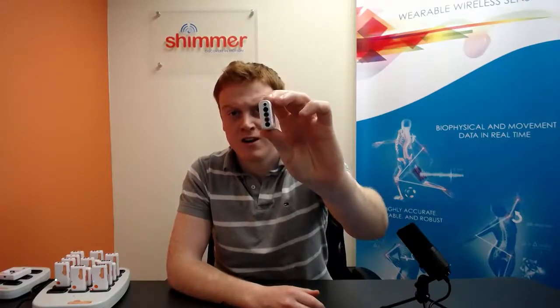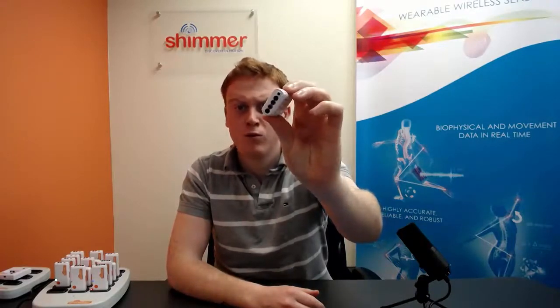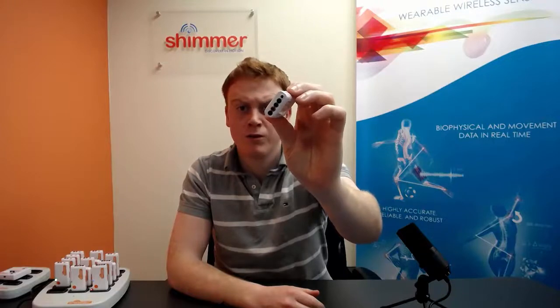The EMG sensor can be used to measure two channels of EMG simultaneously. As you can see, the unit has five ports. Two ports for each channel and one port, the middle port, for the reference electrode. With our system, the unit is typically placed on the body location of choice, with biophysical leads connecting the unit to the EMG gel electrodes that are placed at the measurement site. Also worth mentioning is that the EMG sensor has the full 9DOF inertial sensing capability of our standard Shimmer3 IMU motion sensor. All these signals can be measured simultaneously to allow for greater context to be given to the user's activity.